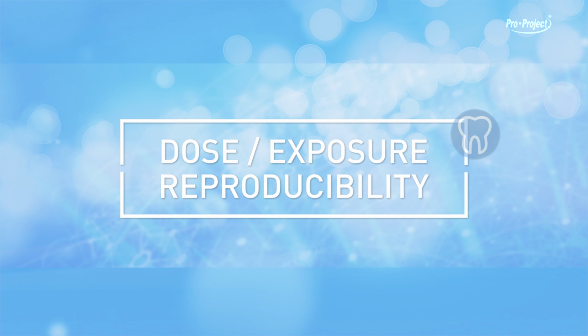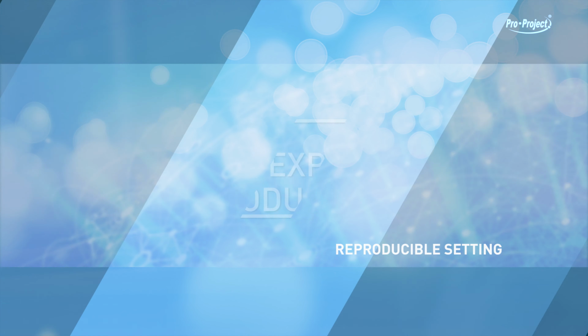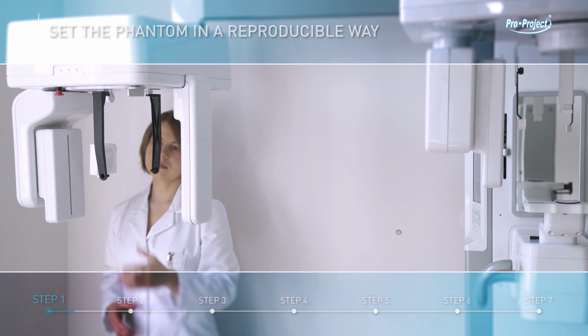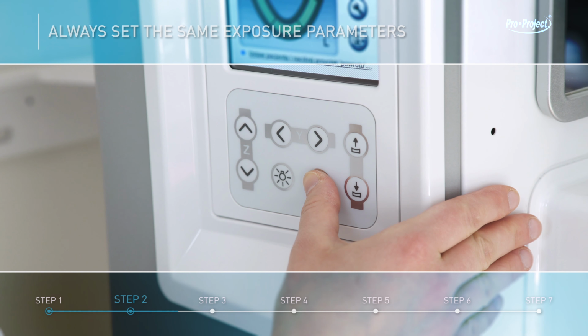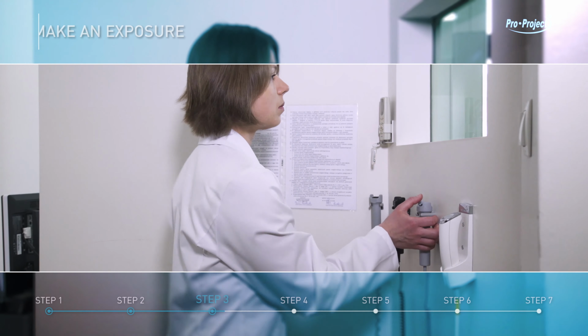Dose exposure reproducibility. Reproducible setting. Set the Phantom in a reproducible way. Always set the same exposure parameters. Make an exposure.